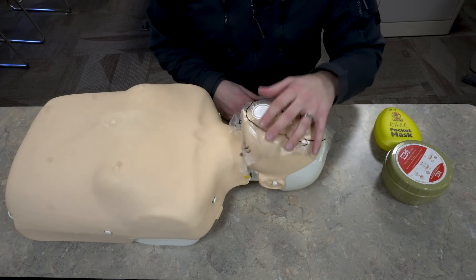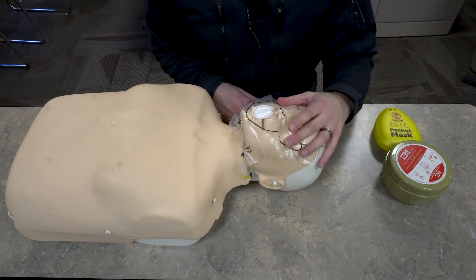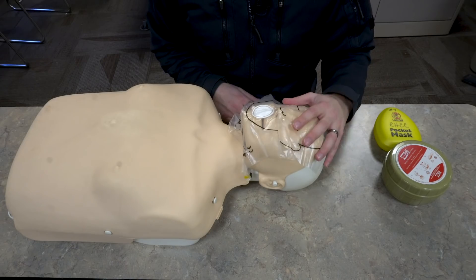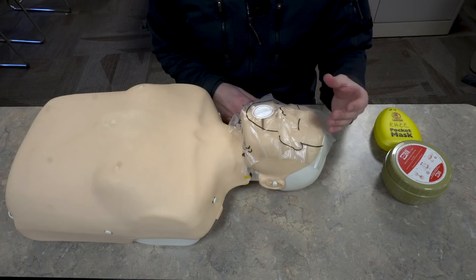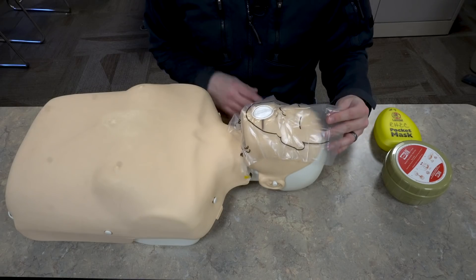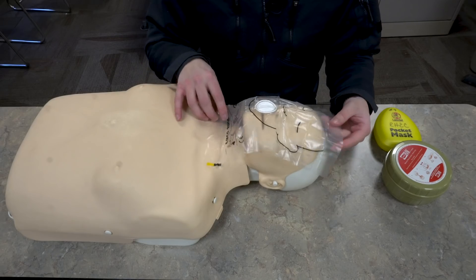Obviously this has a high risk of infection and spreading germs, so I do not like to use these and I really don't recommend anybody use them just because of that. Now this is better than nothing. I would never do mouth to mouth unless it was a family member or close relative I know really well. I would never do mouth to mouth in the field just because there's such a high risk of infection and the spread of disease.